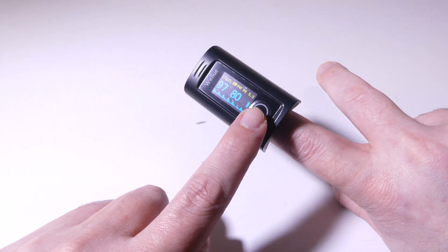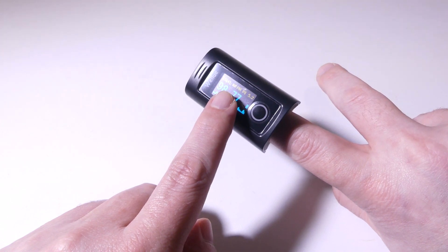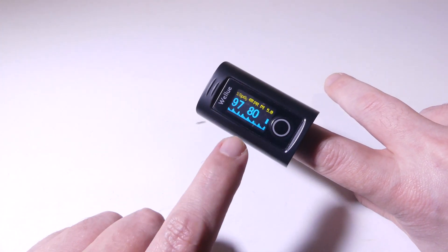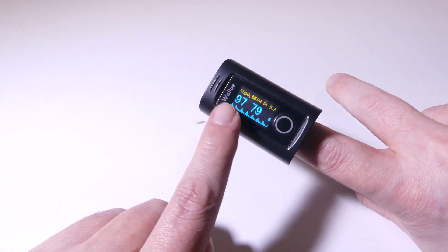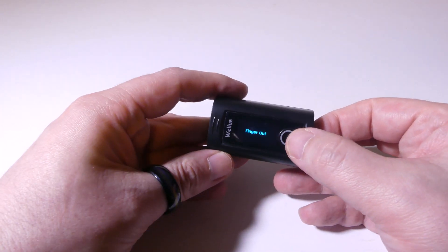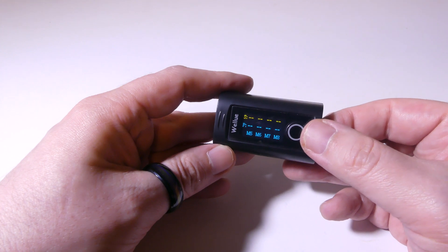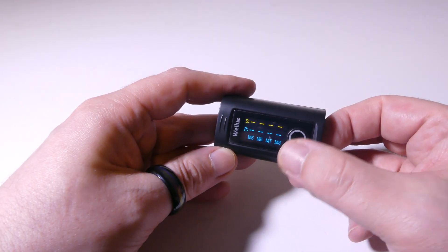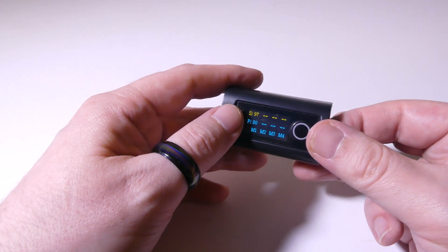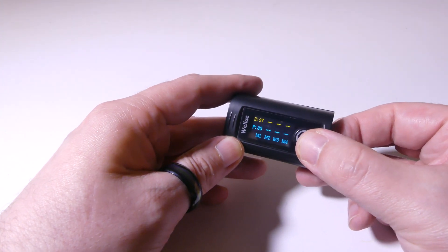You've got a few extra things that I don't usually see on basic pulse oximeters — the wireless Bluetooth connection, and the perfusion index, in addition to the normal things I've seen on fingertip oximeters. When you take your finger out and the device powers off, you can press this button to access the last 12 memory settings for your SpO2 and pulse rate. It'll track up to 12 of the last readings without even using an app, so you don't have to feel like you have to use the app.